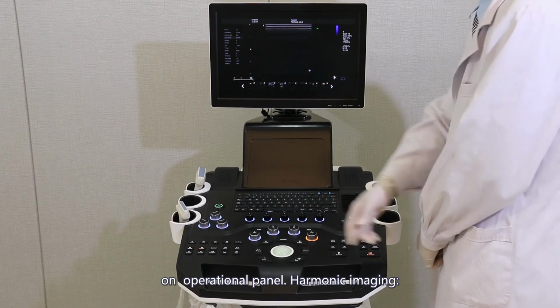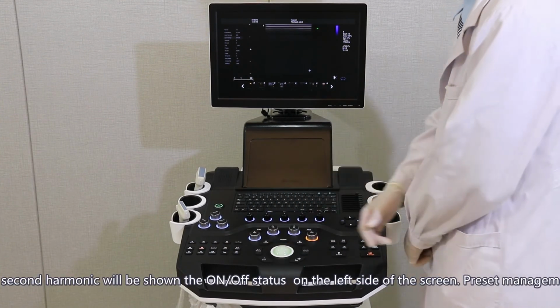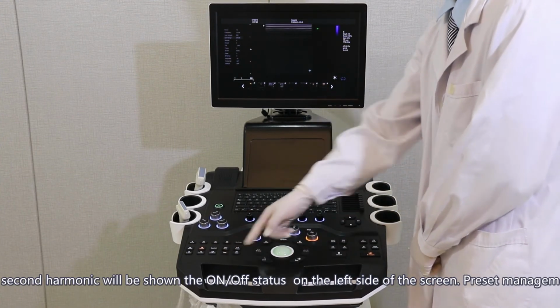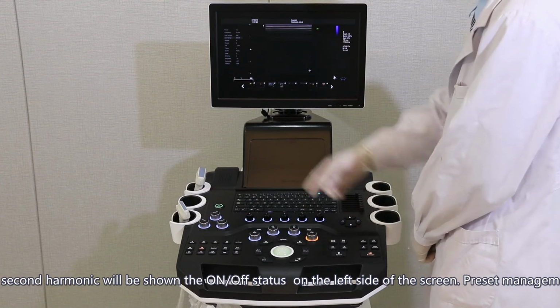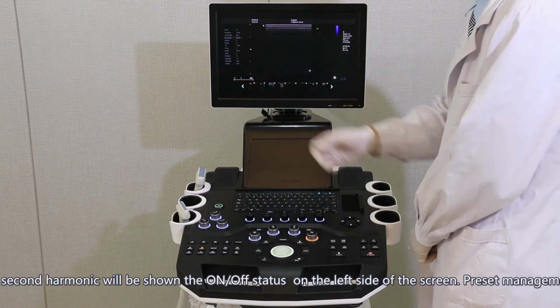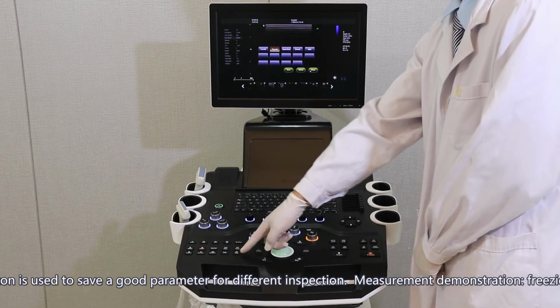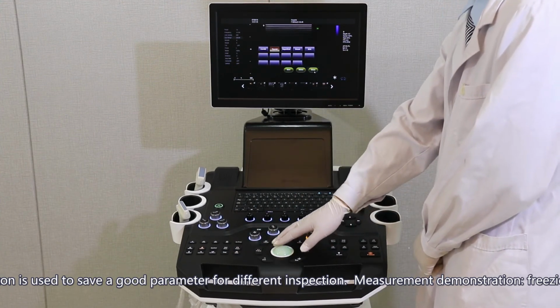Harmonic imaging. The second harmonic will be shown in the on and off status on the left side of the screen. Preset management. This button is used to save a good parameter set for different inspection parts.